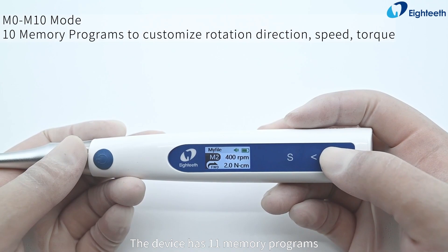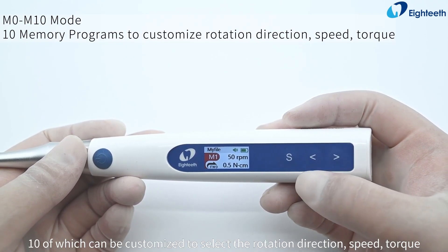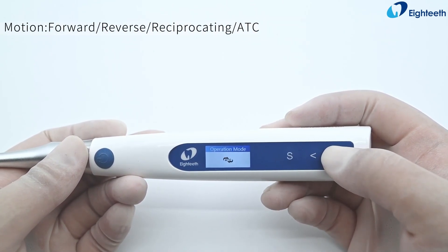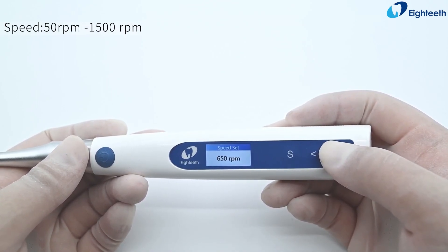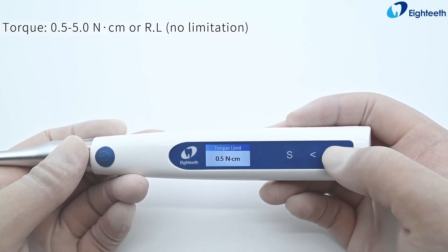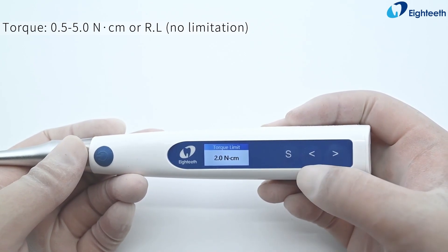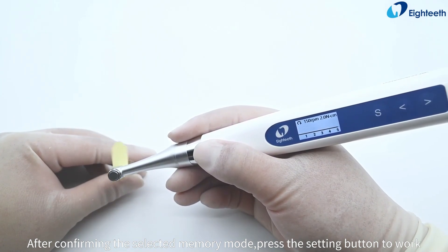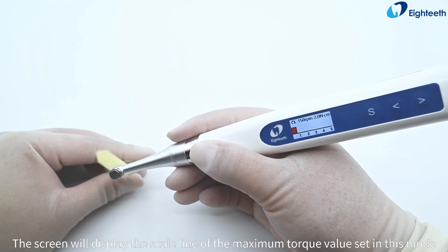The device has 11 memory programs, 10 of which can be customized to select the rotation direction, speed, and torque. After confirming the selected memory mode, press the setting button to work. When working, the screen will display the scale line of the maximum torque value set in that mode.